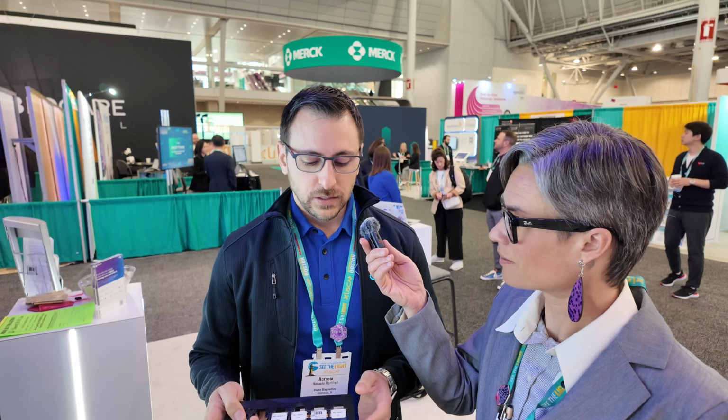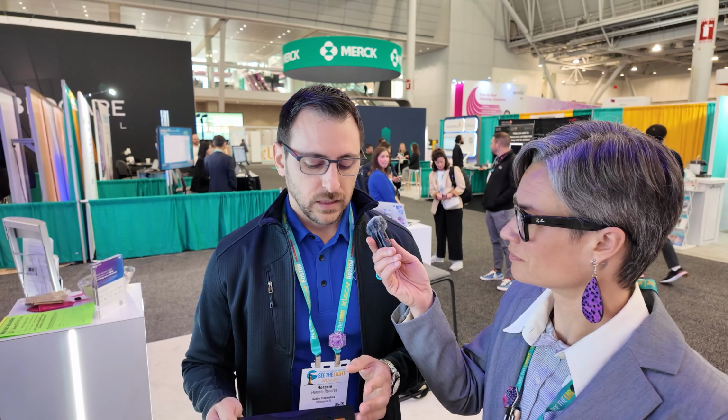You don't want to have that, but the scanner can handle it, because it's not picking individual slides, it's moving the tray in. So even if the labels are a little off and the slides are still wet, it won't get stuck in the scanner, and it's virtually impossible to lose or break a slide inside the scanner because of the tray. That's something that makes our platform very reliable.